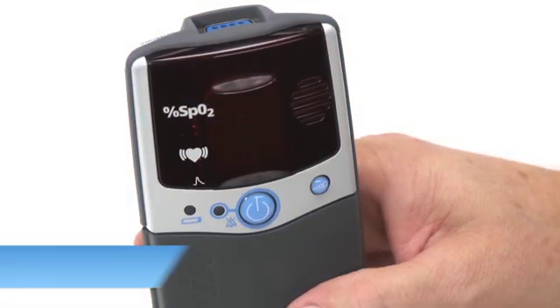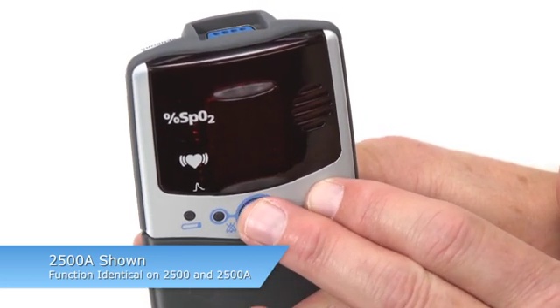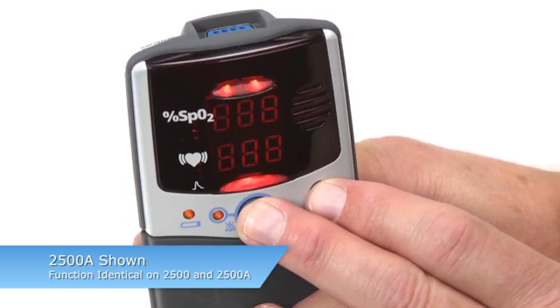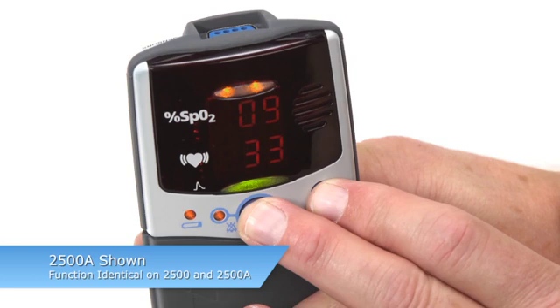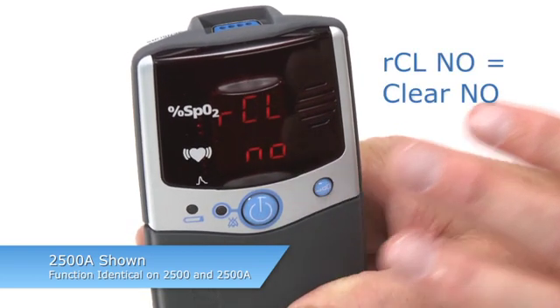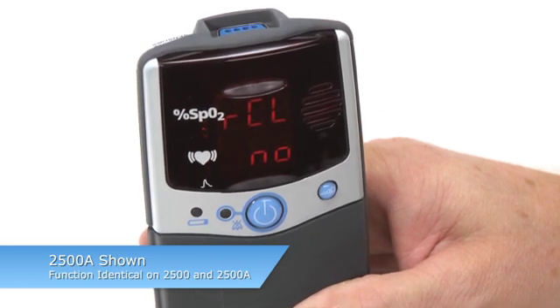To enter setup mode on the 2500 model, start with the oximeter turned off. Press and hold the on-off button and advance button, and while holding the advance button, release the on-off button. A series of 3 8s will appear in the pulse rate and SpO2 areas, and the clock time will briefly appear, followed by RCL No. This allows you to retain the memory on the oximeter or clear it.